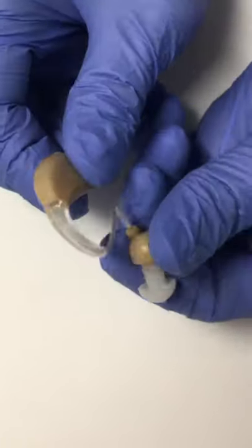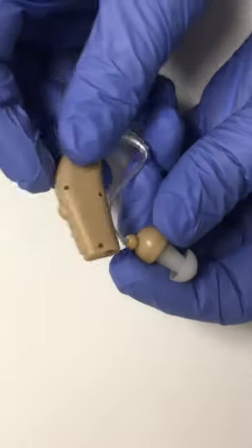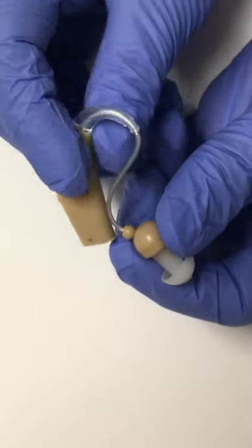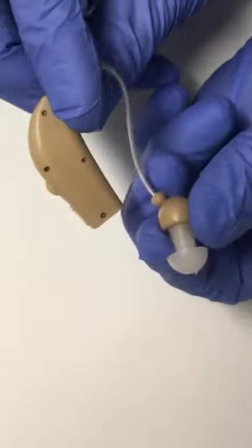But if anyone has a real hearing loss, this is only going to help a small amount and they probably need a real hearing aid to solve that. But this is what you can get for $20 at CVS Pharmacy to treat hearing loss.